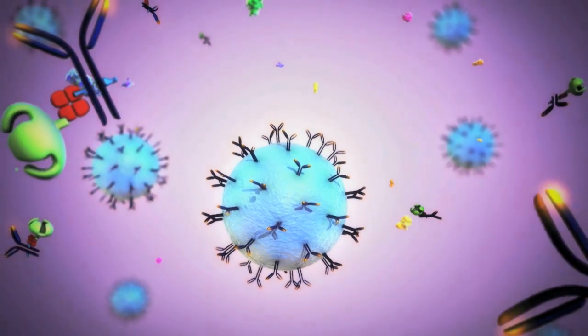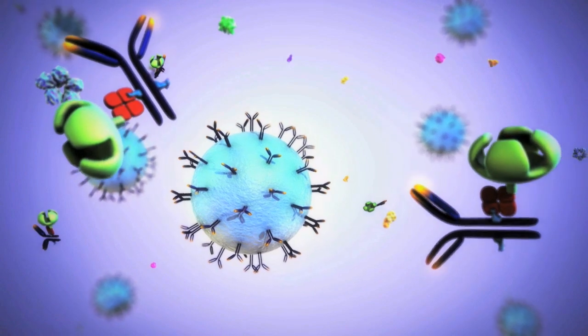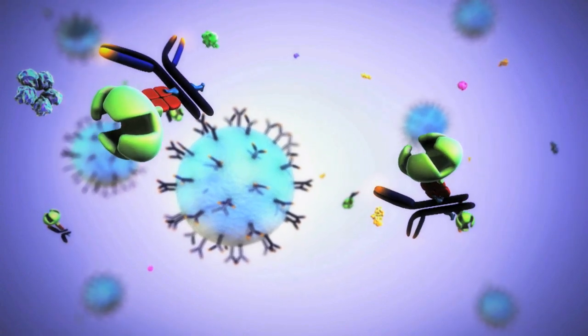Next, detection antibodies containing an enzyme capable of generating fluorescent product are introduced to the solution.